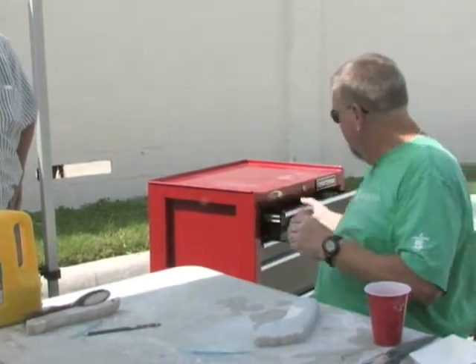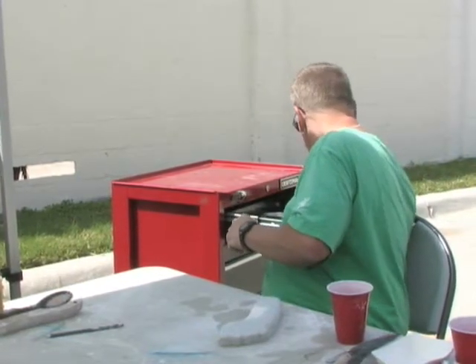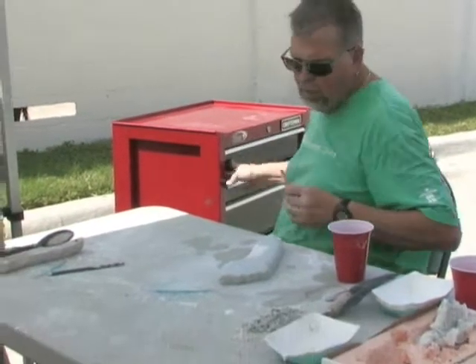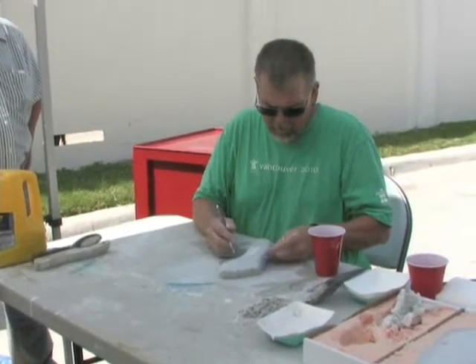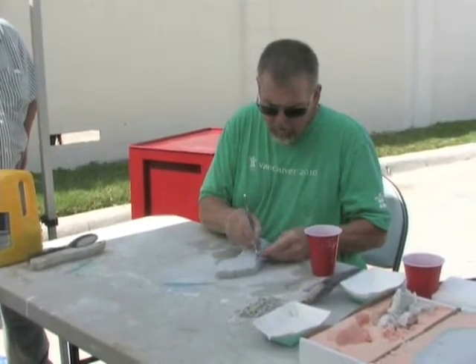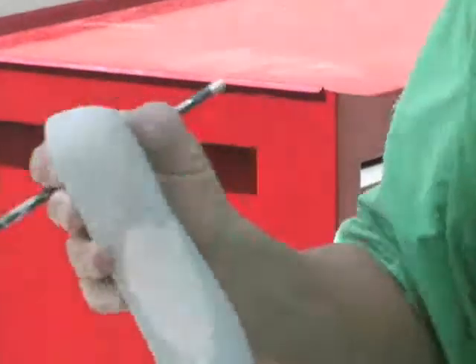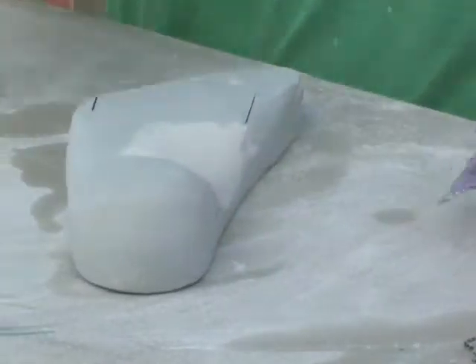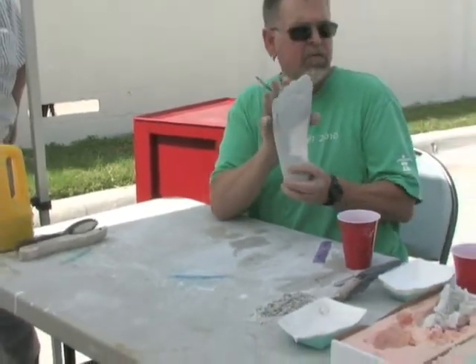Now the only thing I want to do here is take a ruler and lay this out. Along the lateral aspect of the heel I put a line on the cast, then the same thing on the medial side coming up to the center of the hallux — so I have two parallel lines running back through the longitudinal aspect of the metatarsals.